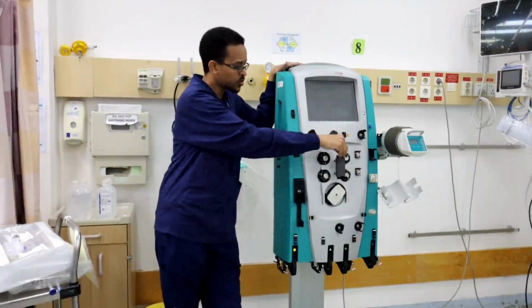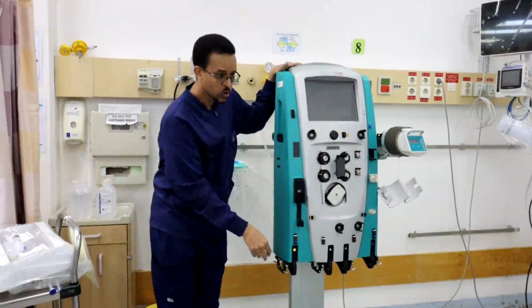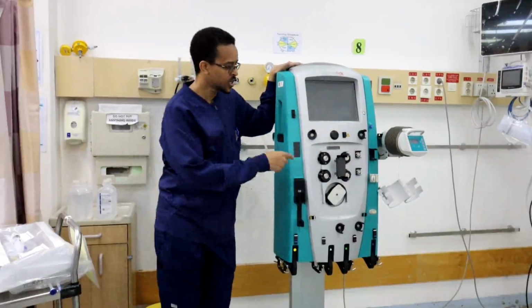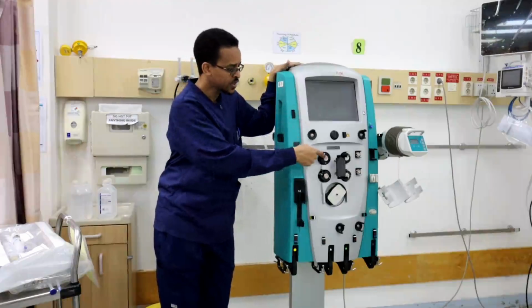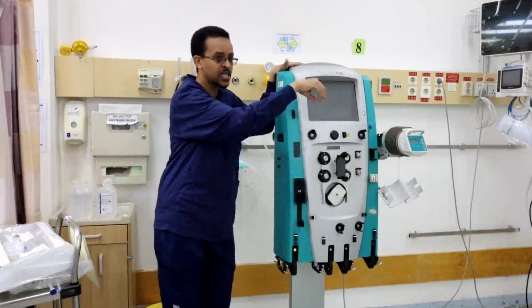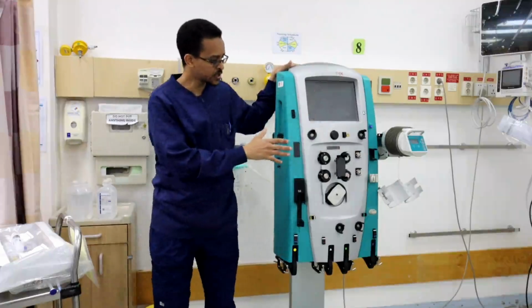So there is a line coming out of the filter and taking all this waste to an external bag, a waste bag or effluent bag, to continuously clean the filter. There is a pump. This pump is continuously working, so it's continuously suctioning any waste or effluent to take it out of the machine. So this is regarding the pumps.